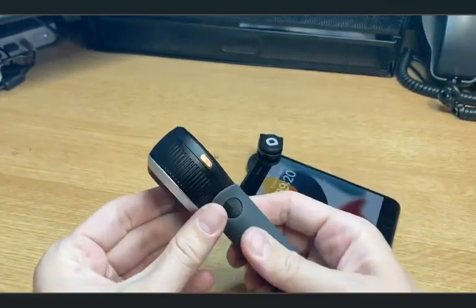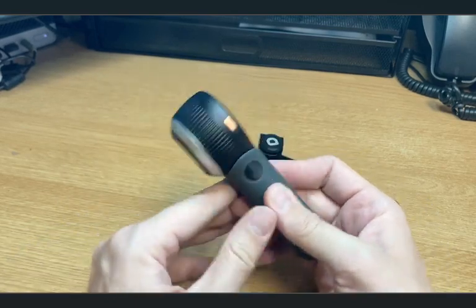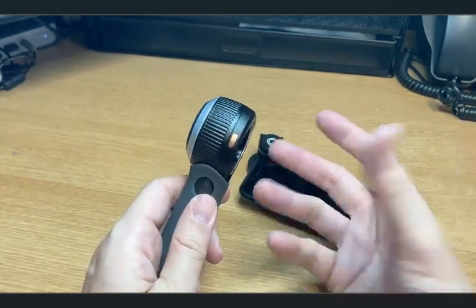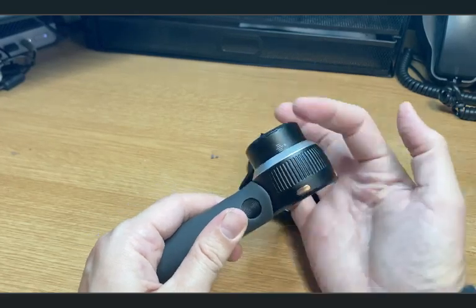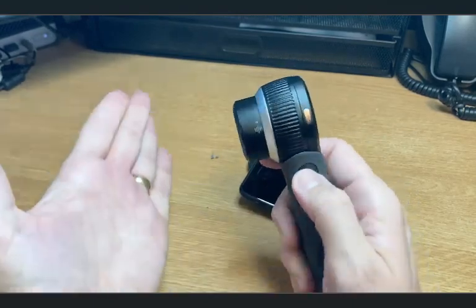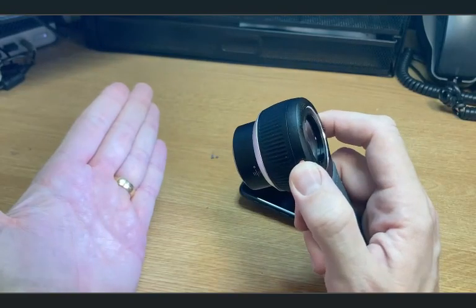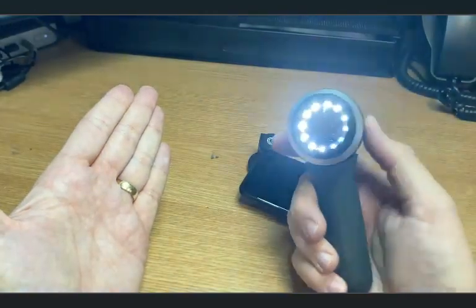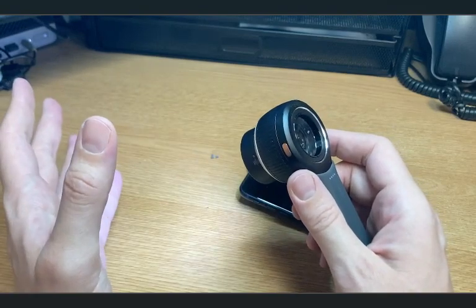With regards to the dermatoscope, it's stored flat, so you can see here it's relatively flat, but this means that when you try and get an image, it's going to be out of focus. So using this twist mechanism, you can then move this in and out, and that will change it. The button on the side is a lovely light, gives you a nice shining light, and you can then set it for polarized, depending on which one. And the advice is that you adjust between these light settings to get the best image.